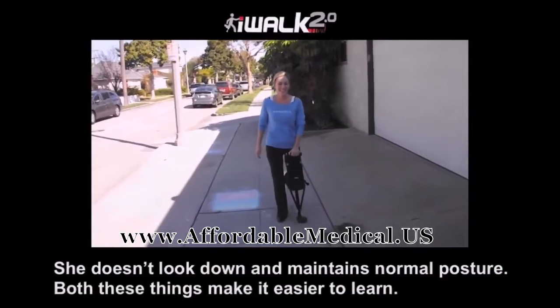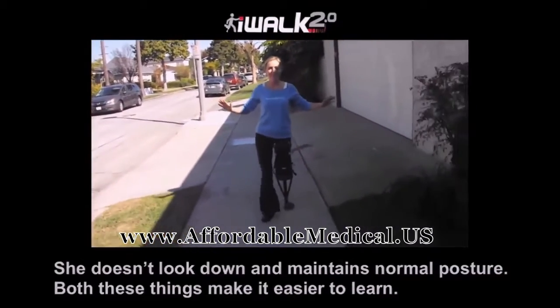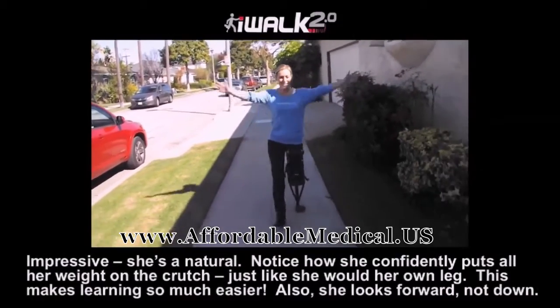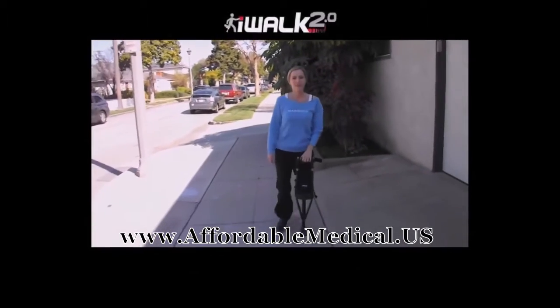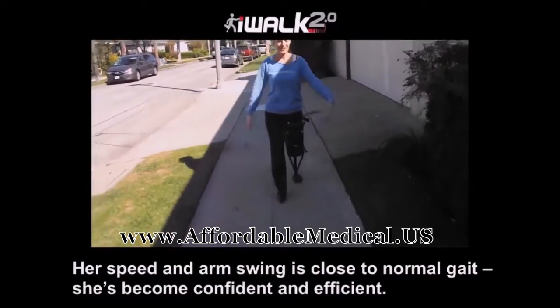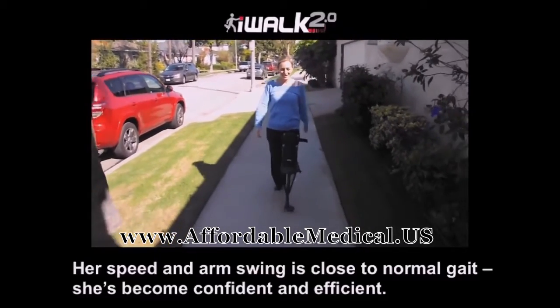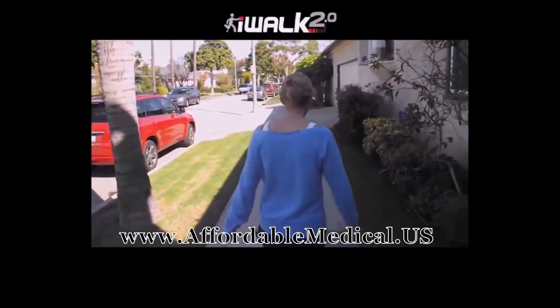Alright, I'm doing it! It's not that bad. I'm going to let go of my hands. I'm walking. Yes! Awesome. Wow, this is faster. No hands — I can do it. This is going to be so great. No more crutches. Woo!